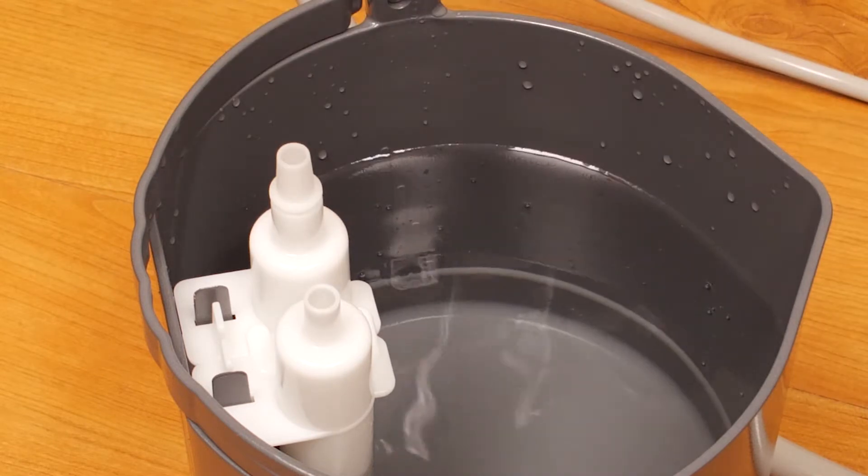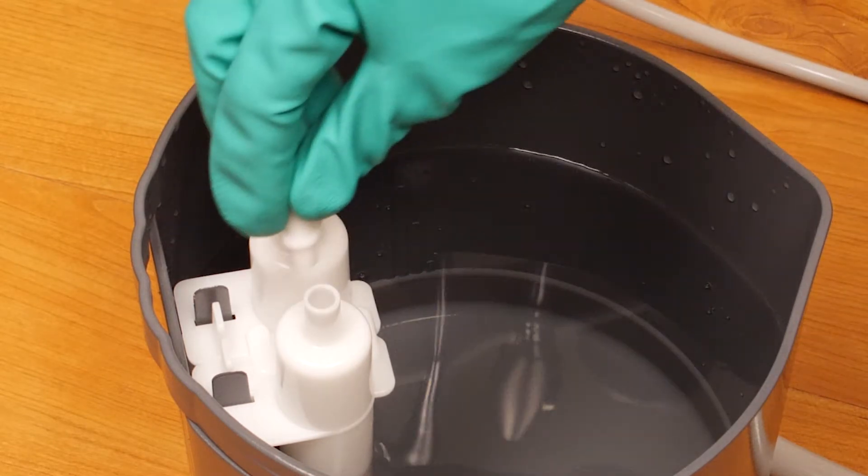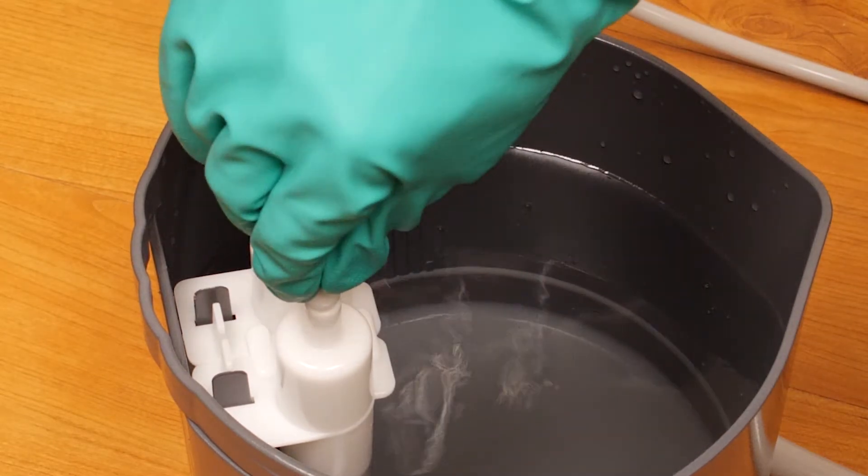If necessary, attach the adapters which come with the dispenser if the suction lines do not fit on the dispenser valves.